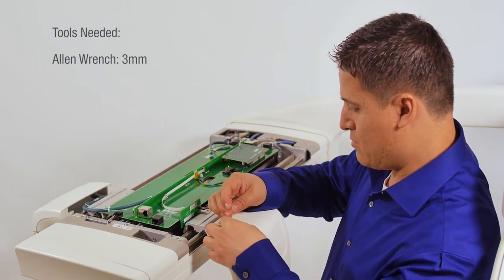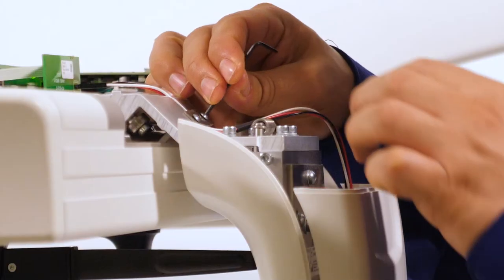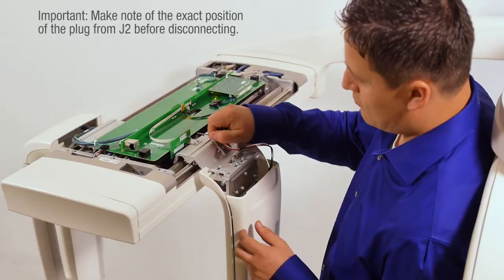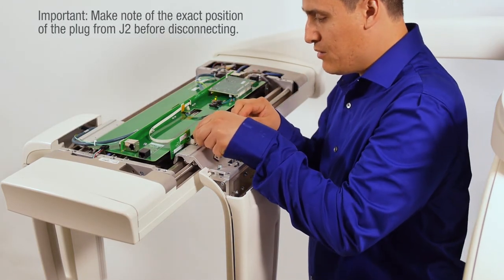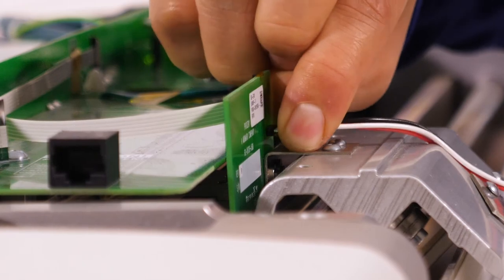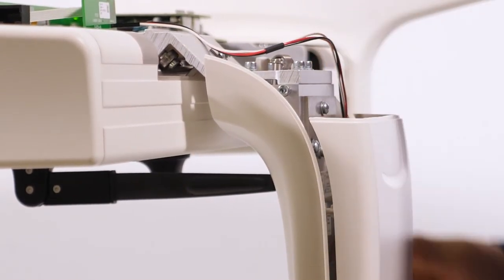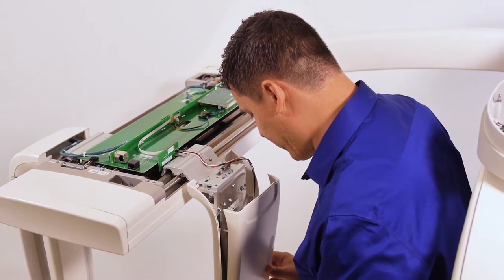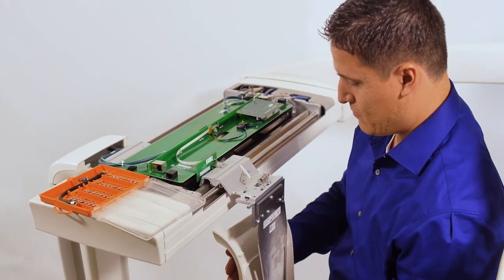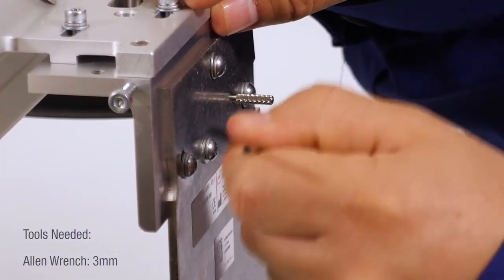Very carefully, remove the top cover from the secondary collimator by removing the two screws. Remove the wire guide screws and plate. It is important to make note of the exact position of the plug from J2 before disconnecting — if it is not put back in the right direction when the machine is reassembled, the unit will not work. Now that you have noted the plug position, unplug the connector from J2. Gently pry the front cover away from the secondary collimator, being careful not to damage the bottom tabs. Remove the three screws from the secondary collimator rear cover and remove the cover. Insert the small alignment pin for support, then remove the four Allen screws from the secondary collimator and remove the secondary collimator.